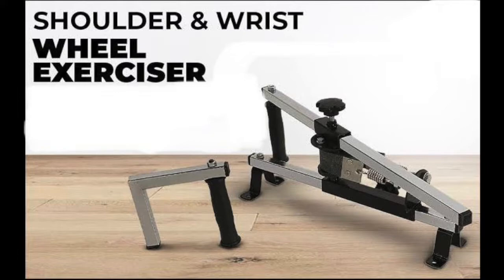Shoulder wheel is a therapeutic device used for rehabilitation of the upper limb. We can use it for the shoulder joint, elbow joint, and wrist joint.